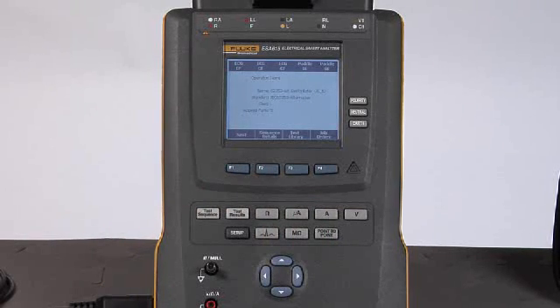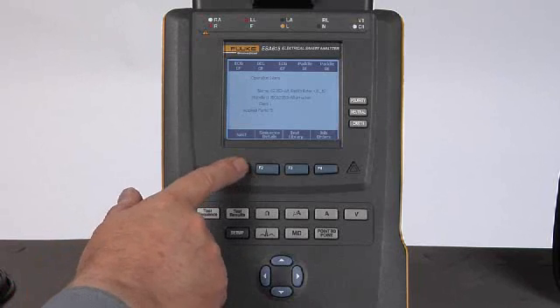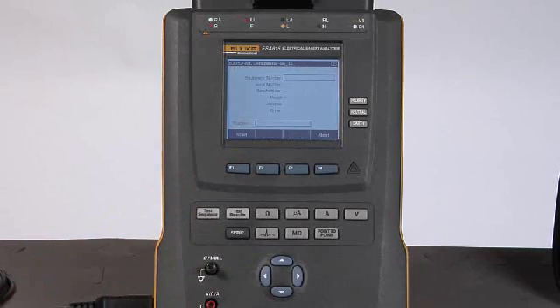If you choose to run the selected test sequence, press the F1 button. This allows you to enter the device under test information, including the location — whether it be a particular part of the hospital, another building on campus, or across town. Once that information is entered, press the start button to actually run the test sequence.